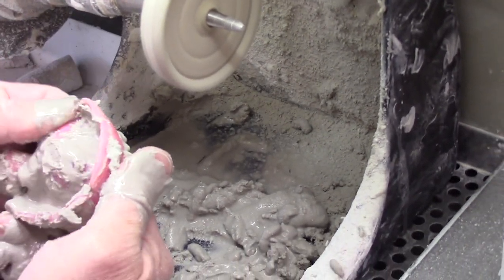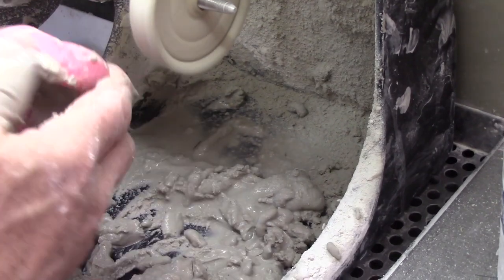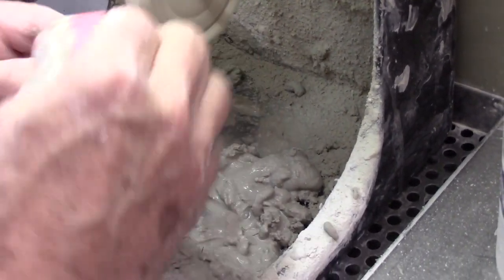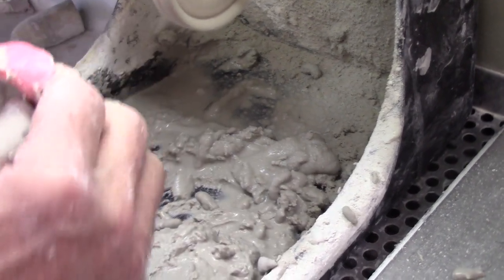Take your finger and go around the periphery — make sure you don't have anything sharp. It should look like that. Now we can lift this off and I'll hit it with the high shine.